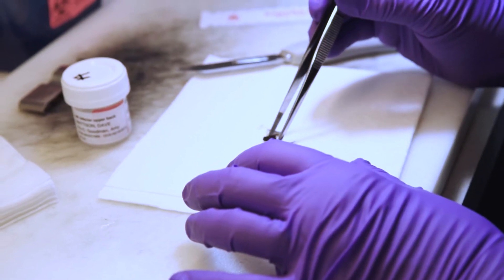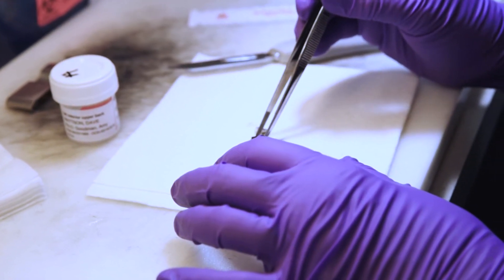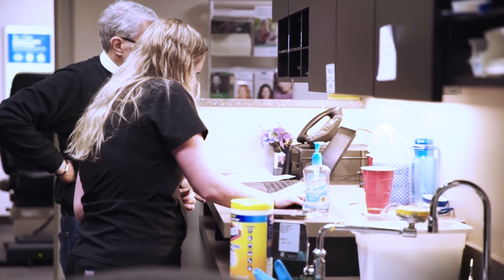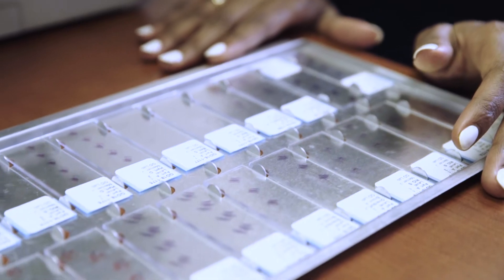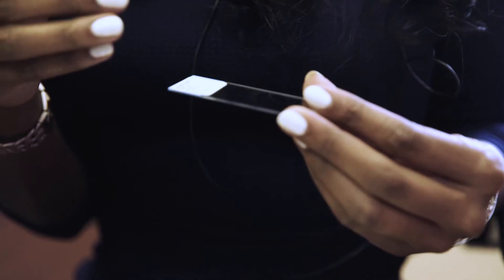A dermatopathologist interprets skin biopsies. If you were to go to a dermatologist, one of the providers in our practice, and they felt the need to take a skin biopsy because of concern for a skin lesion that may be cancerous or a skin rash, I interpret that and I'm able to render a diagnosis through microscopic examination of the skin.